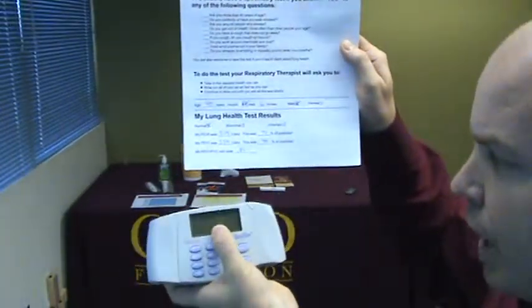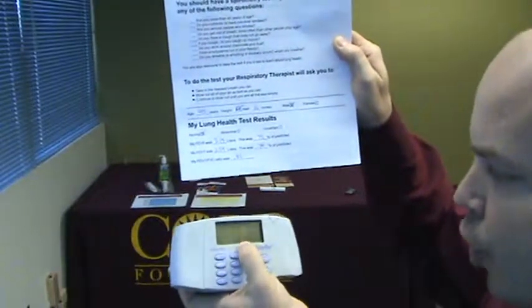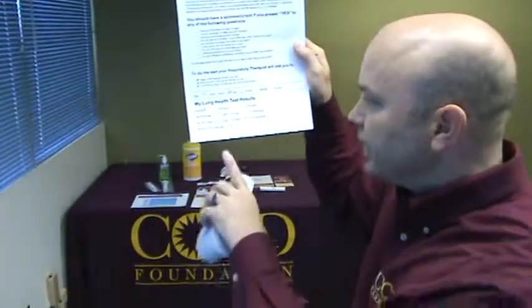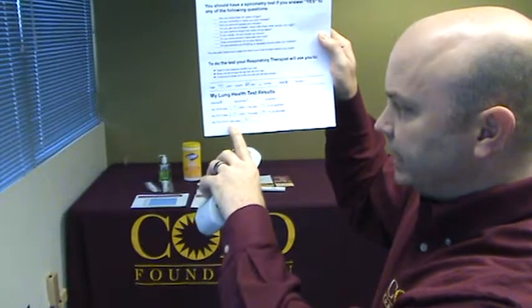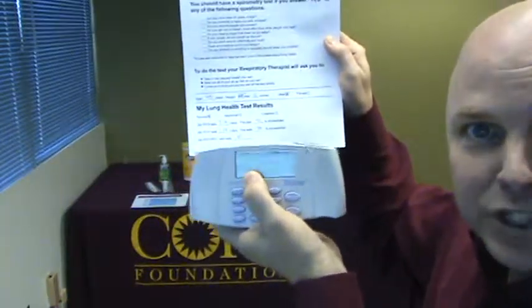The next is FEV1: 2.59 liters and 70% predicted. And then the FEV1/FVC ratio, 0.81, is what will be recorded here. This is a very critical value. The ratio reported is either the FEV1 to FVC ratio, or on this machine the value is listed as percent FEV1 — that's how the machine actually gives that value. You want to record the actual value, 0.81, not the percent predicted category. If you record the percent predicted, you will make a mistake in interpretation. The ratio itself is actually a percentage — it's 81% — so if you use the other value, it would read as 100% of predicted and would be artificially higher than normal.